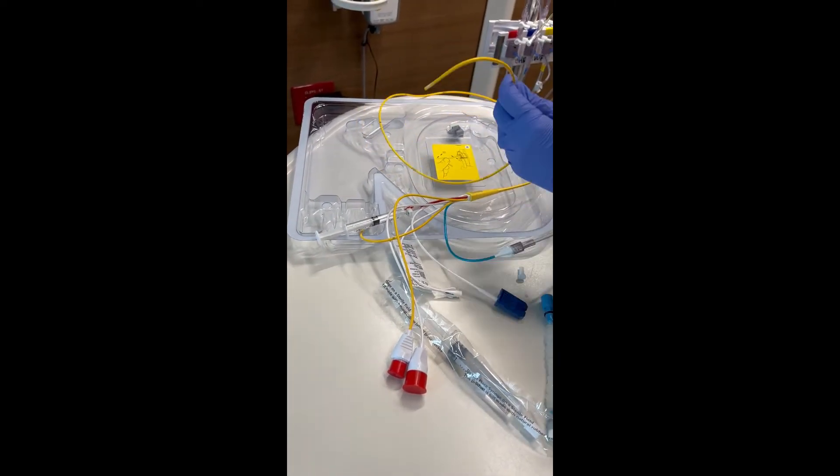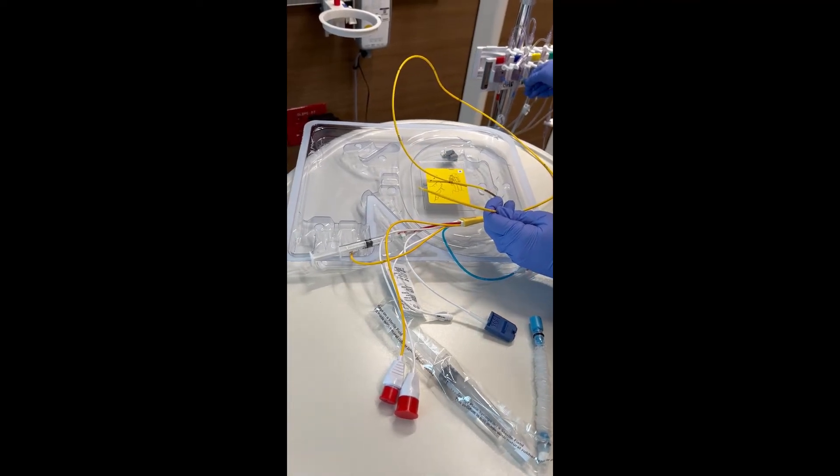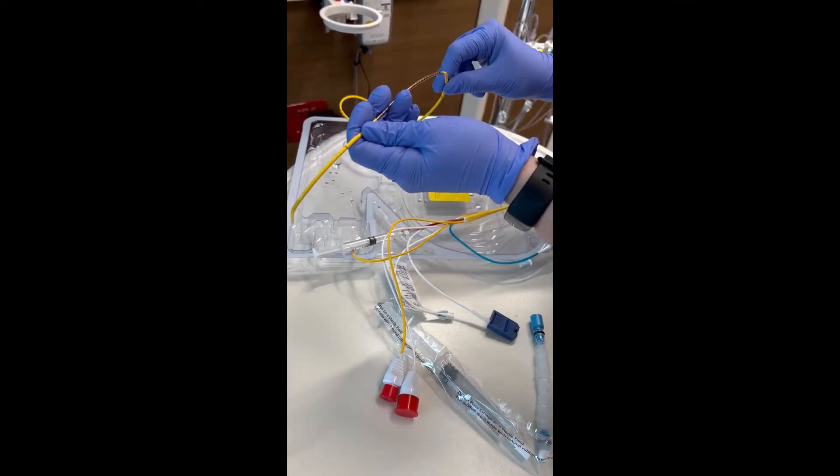Again, the physician is certainly holding this, but I'm just showing you. We're going to flush it out. And there it is flushing out the CVP port.